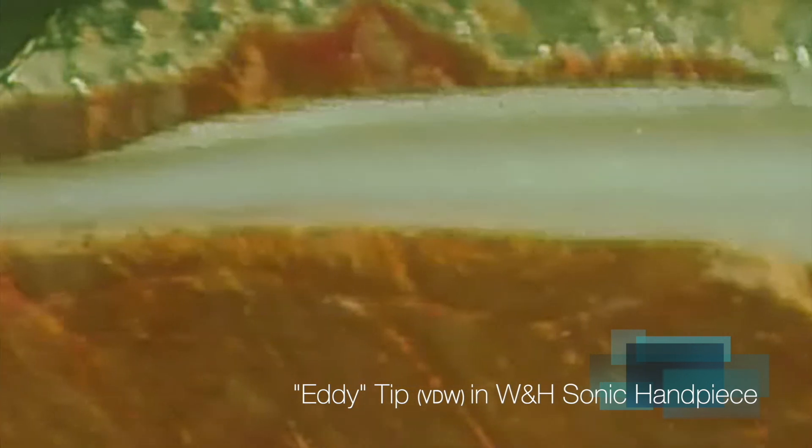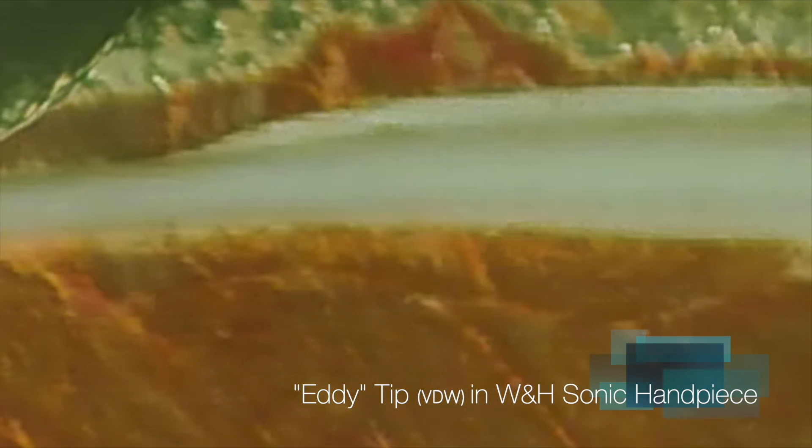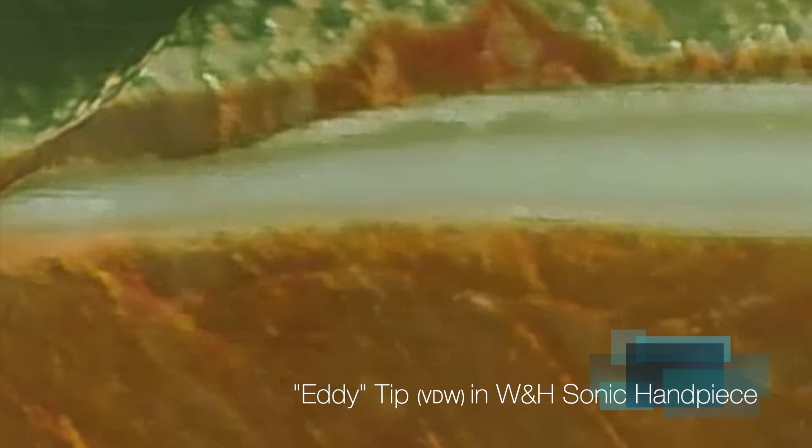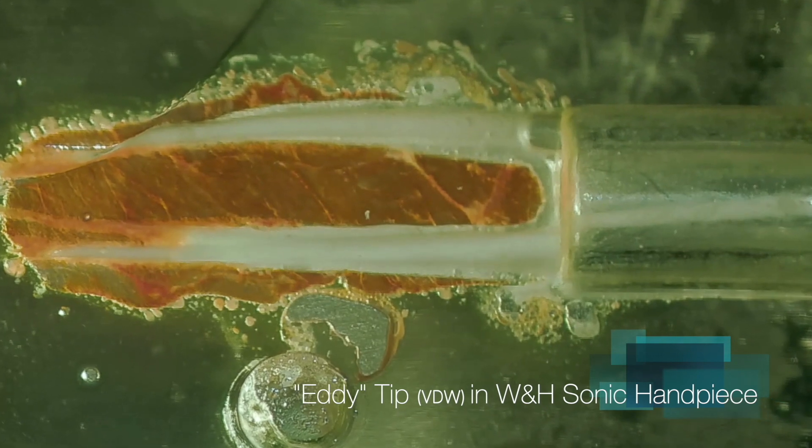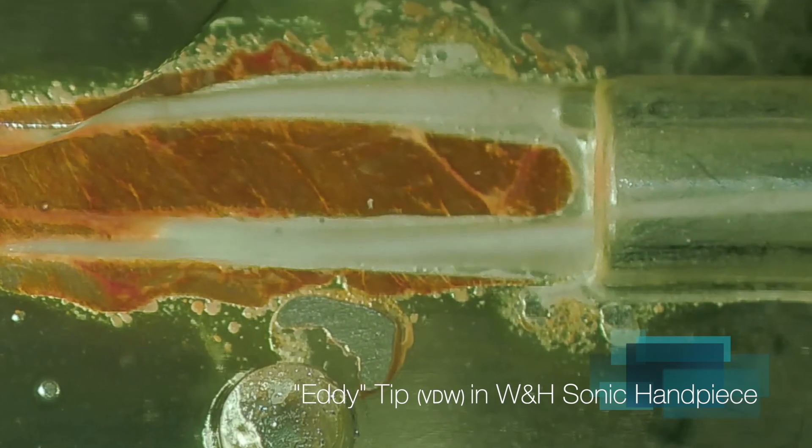Sonic energy is very effective in a root canal, shown by gentlewave. This is not multisonic, but it's a very aggressive activity. It really stirs things much better than ultrasonics.